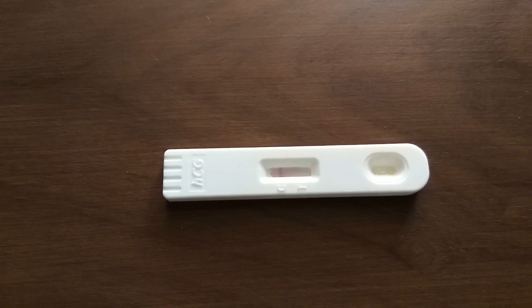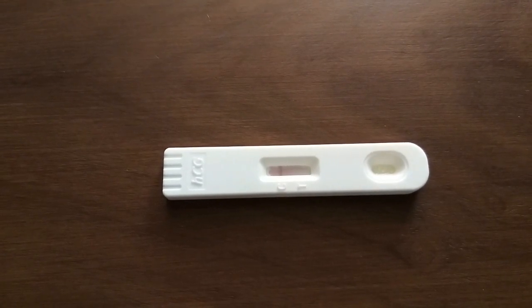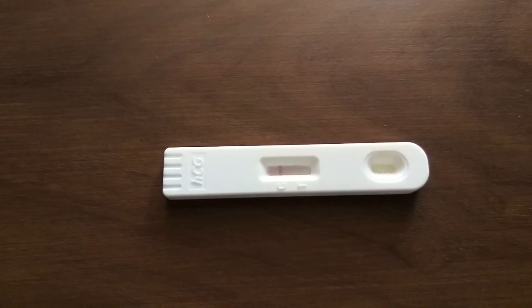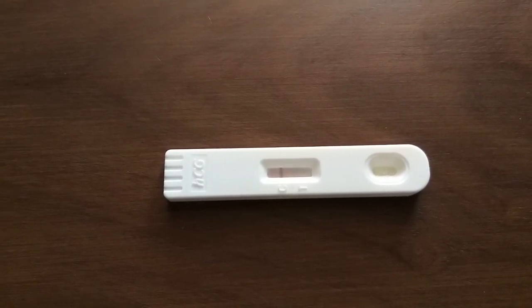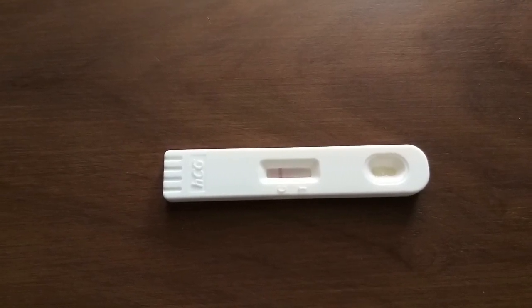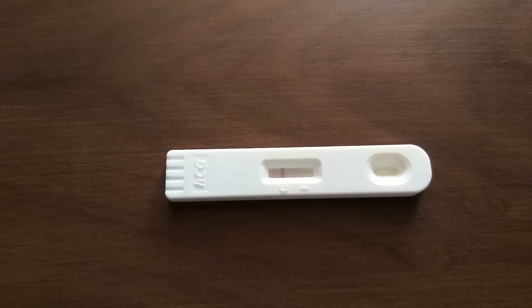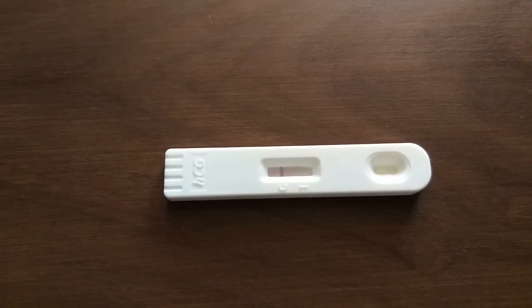In this video, you can see that the kit has only 1 pink line, which means the test is negative. The lady is not pregnant.